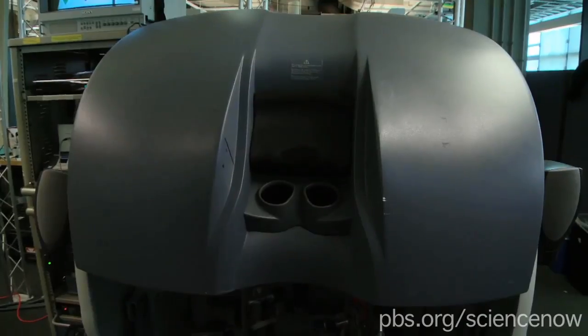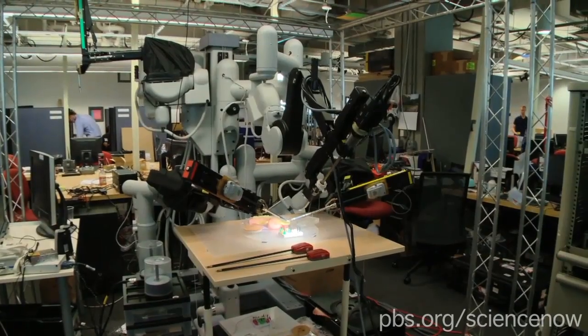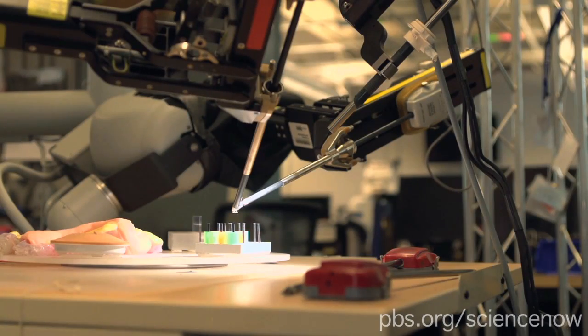This is a DaVinci robot. It's a surgical robot. So I want you to go ahead and try it first the standard way without any touch feedback, and then we'll go ahead and turn the haptics on and we'll see if you can feel the difference.